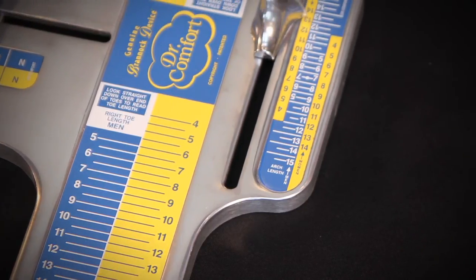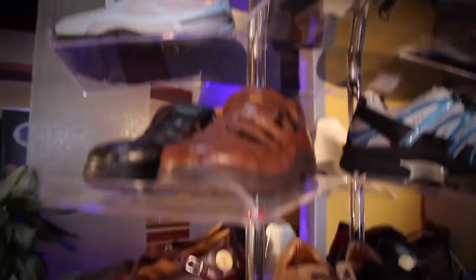Dr. Comfort wants to ensure the success of your therapeutic footwear program. By following these simple procedures, the use of the Brannock device, the recording of your measurements, as well as the fitting and display center, all of these tools will help to assist you with a very successful program.